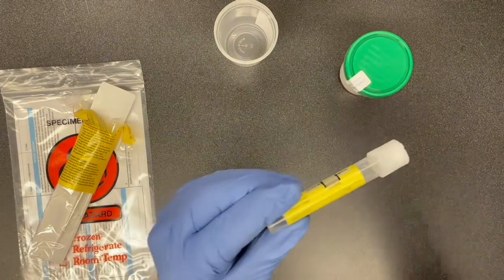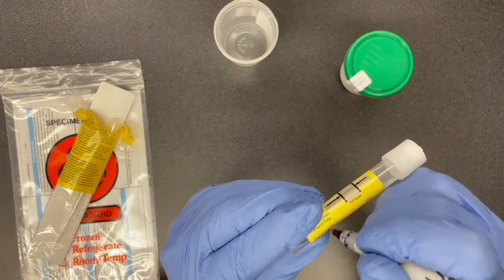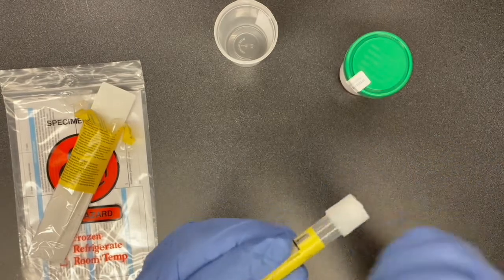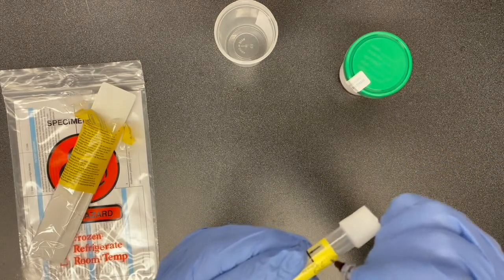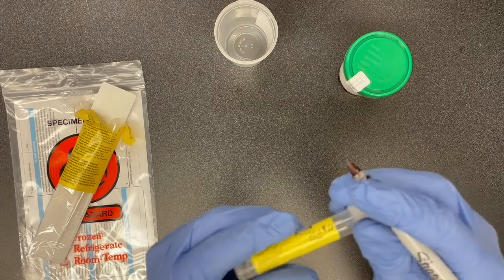First, we're going to want to sign patient's initials, date of collection, and the patient's date of birth.